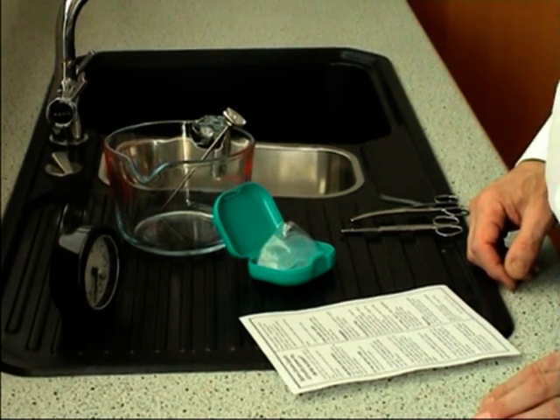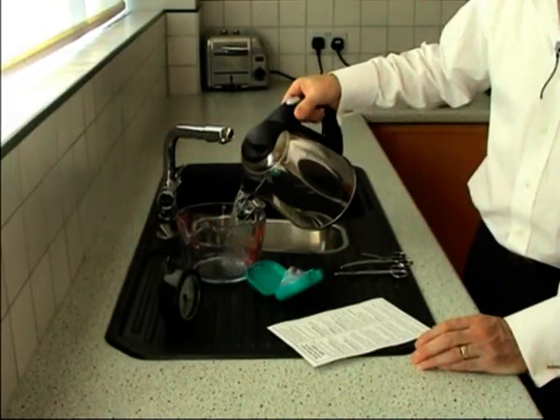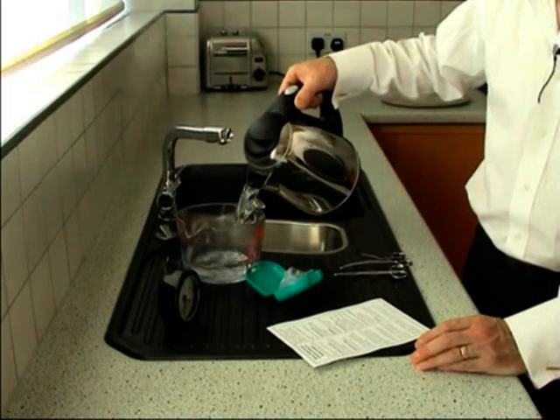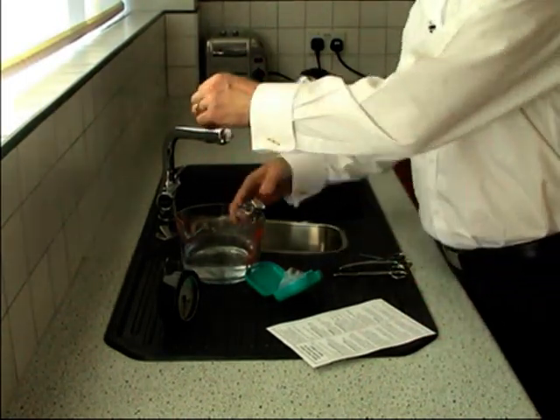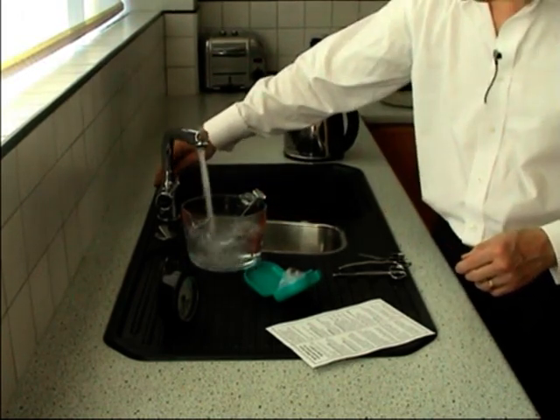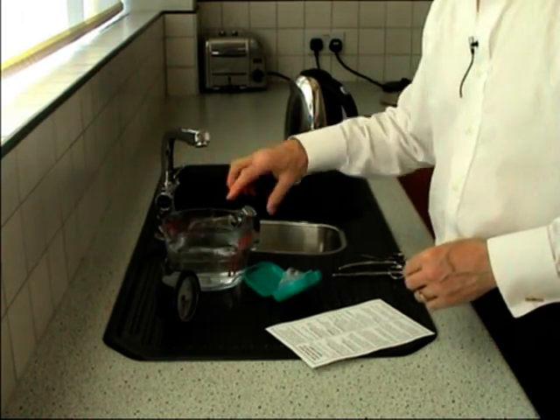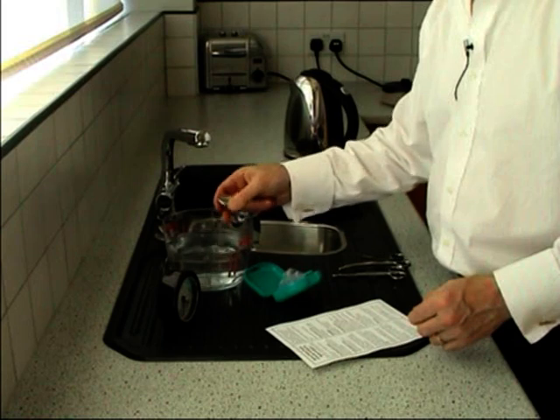The first thing to do is to boil a kettle. So if we put two cups of boiling water into the jug and one of cold water, that should be about 65 degrees C, give or take — which it is.